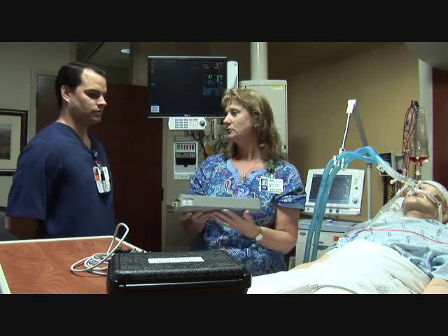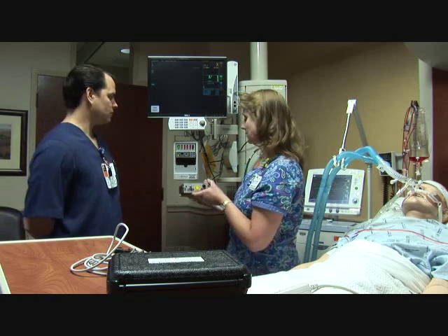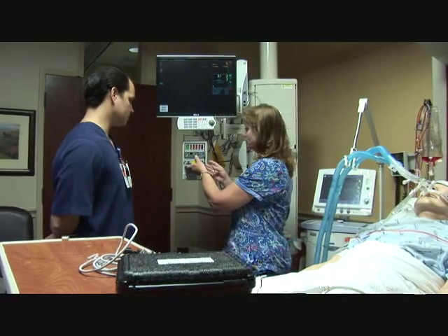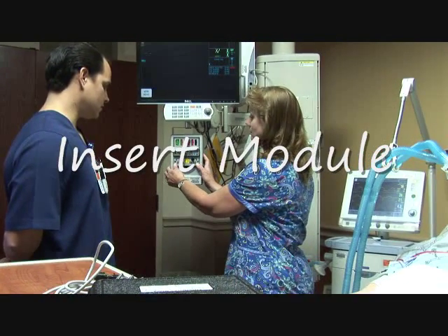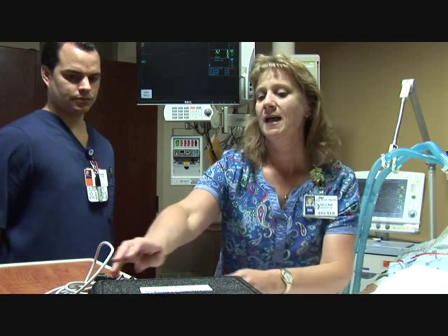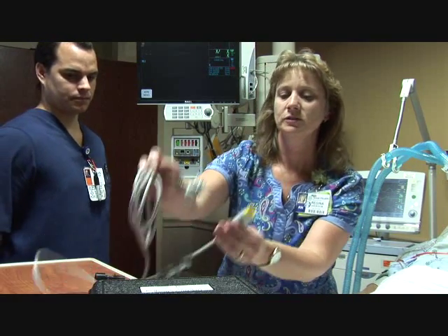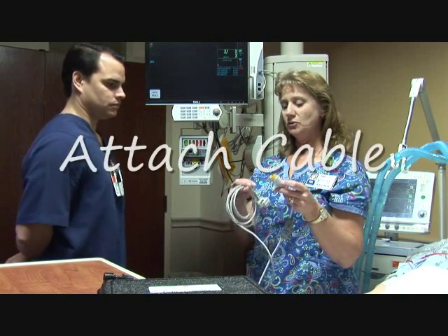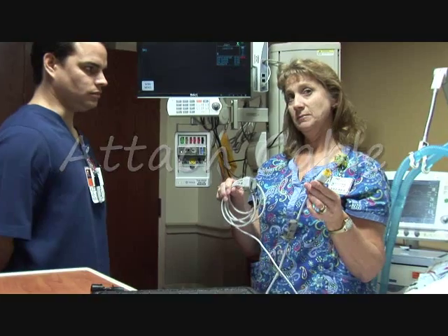Travis, first we're going to put the module into the track there, and you can hear it click. Then you get your cable, and you want to do yellow on yellow. These are really expensive, so you want to be careful.